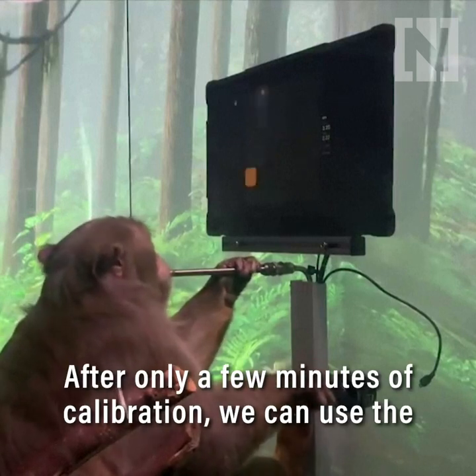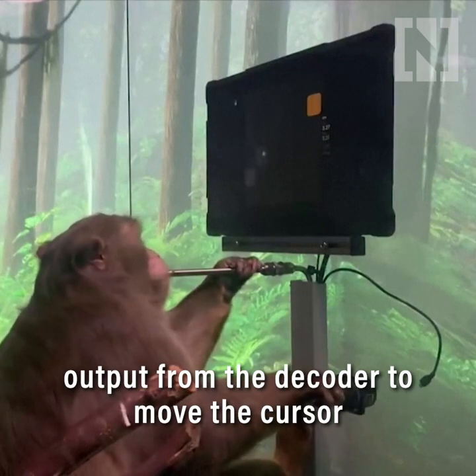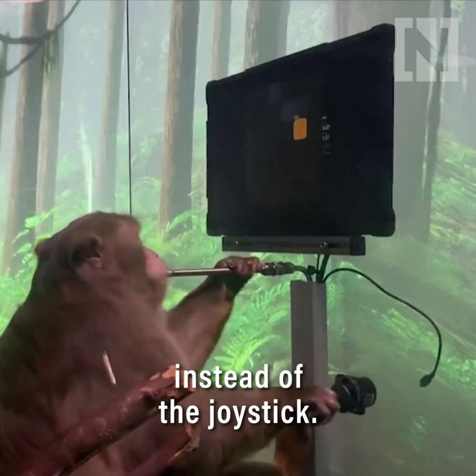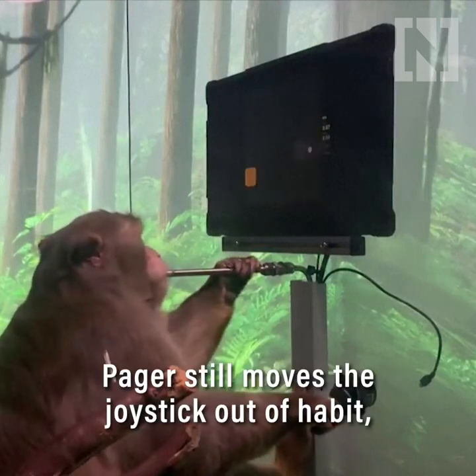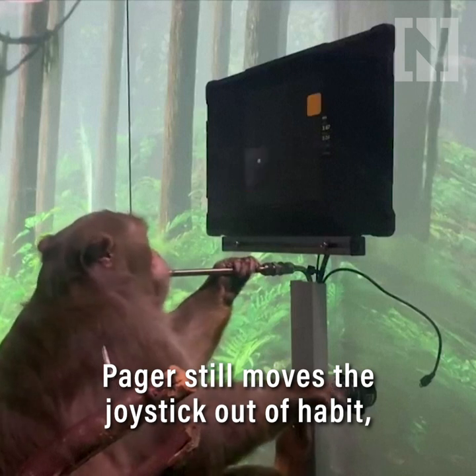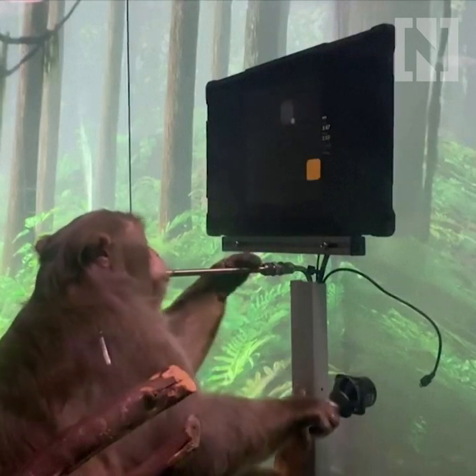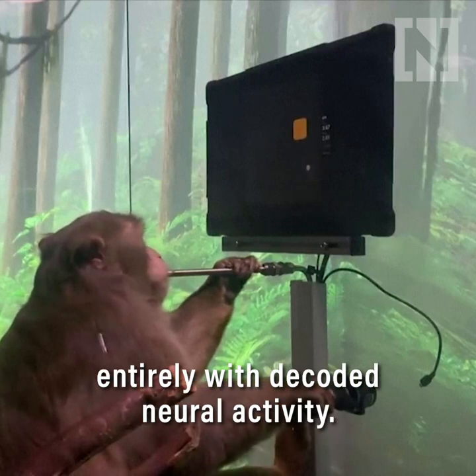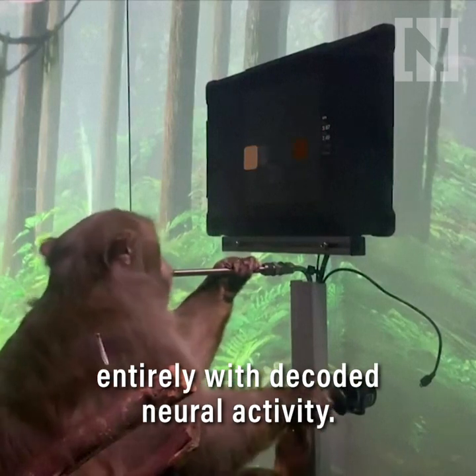After only a few minutes of calibration, we can use the output from the decoder to move the cursor instead of the joystick. Page still moves the joystick out of habit, but as you can see, it's unplugged. He's controlling the cursor entirely with decoded neural activity.